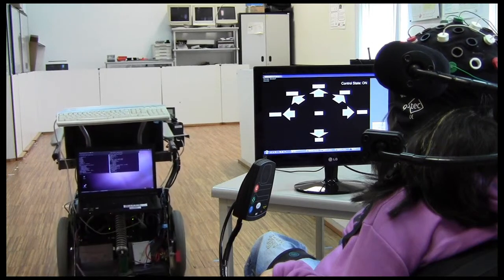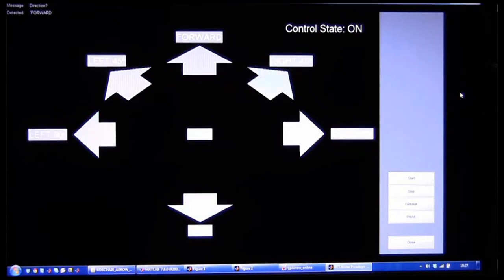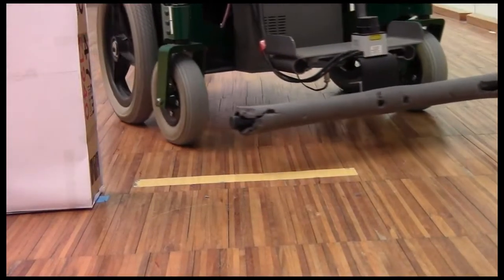The navigation system is also being tested with people that are severe motor impaired. For safety reasons, the tests are being performed remotely.